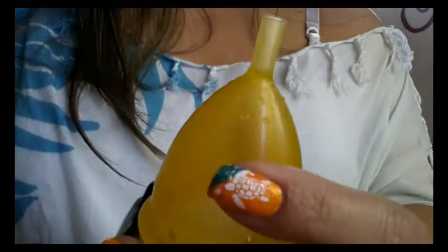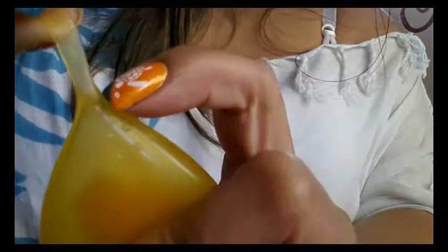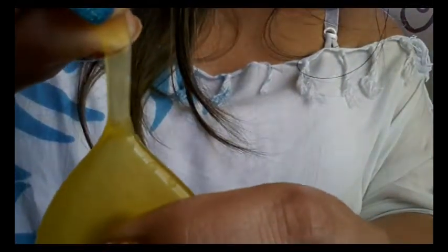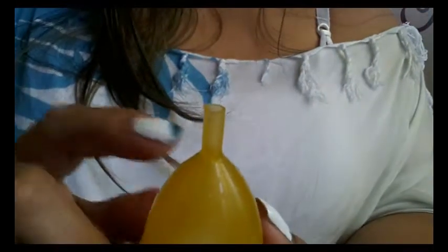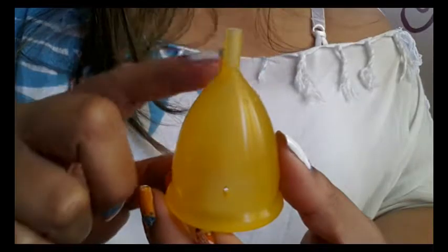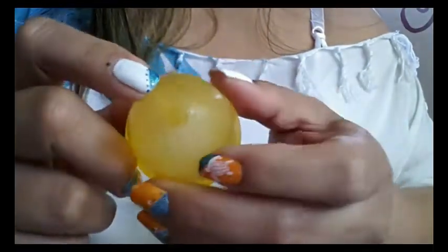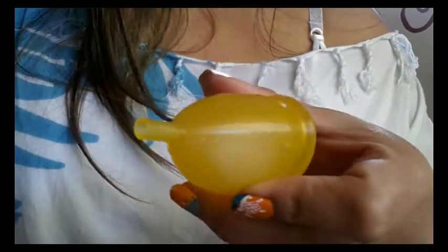With this stem, you do need to be careful if you're going to cut it off because that seal is really, really shallow. You can see the bottom of that seal there, and if I stretch it you can see that there's not very much material between the actual cup and the hollow of the stem. So you have little room for error if you're going to cut it — I would leave some of that stem intact so that you don't accidentally cut down into the actual cup itself or your cup will leak. Right underneath that stem are more of these grip dots, and again they're nice and smooth with no hard ridges or edges. They're not pokey.